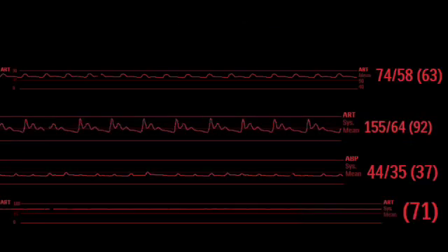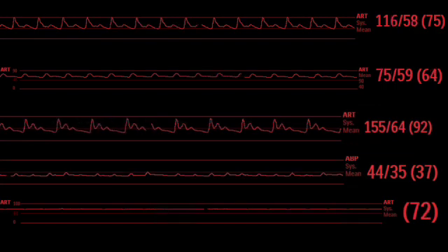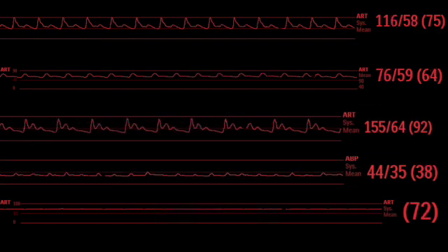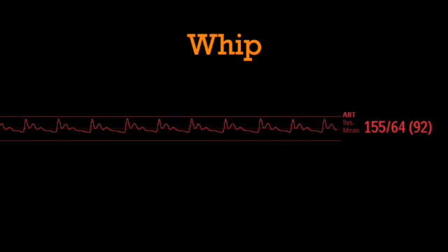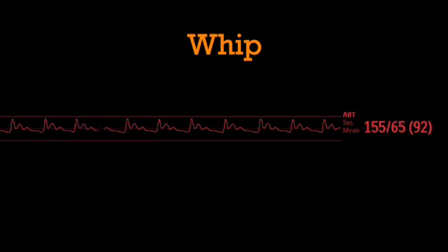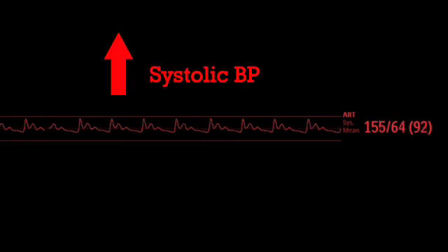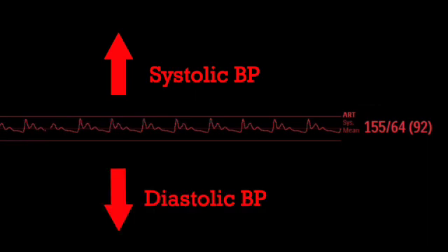Now, there are a lot of things that can make an arterial line look weird, both mechanical and problems with the patient. This video is specifically talking about this issue: the whip. If you Google this, you'll see the word underdamped for this phenomenon, but I've never heard anyone say that at the bedside. In pediatrics, whip is associated with catheters in large arteries and larger kids, thus our 15-year-old after the Ross procedure. Whip overestimates the systolic blood pressure and underestimates the diastolic pressure.